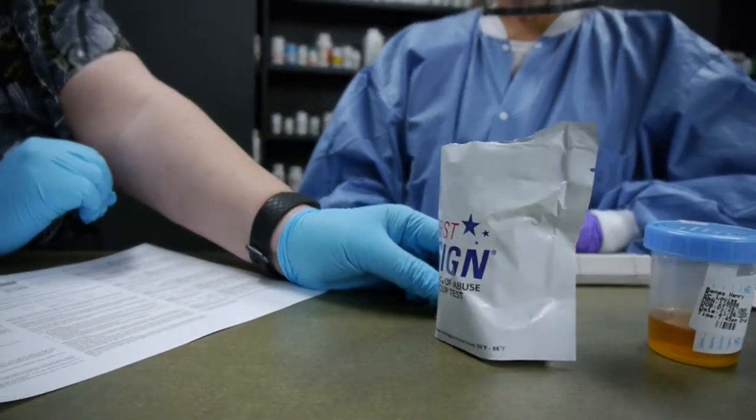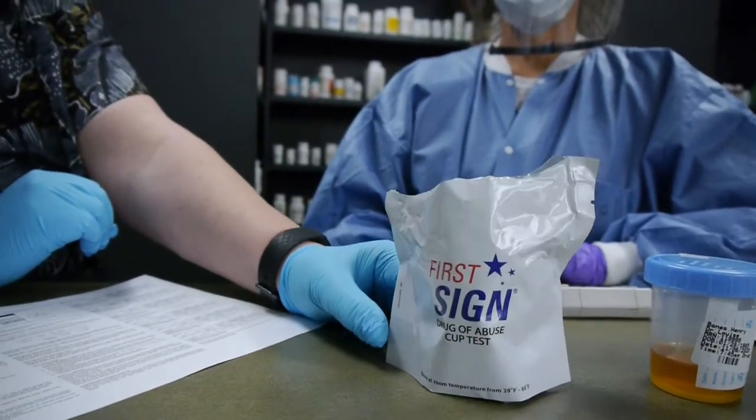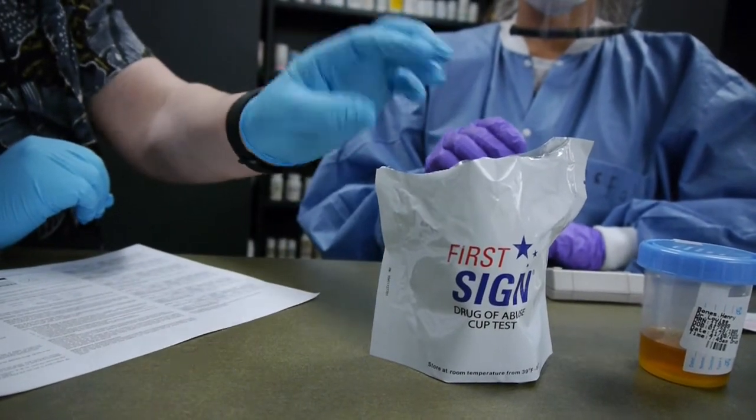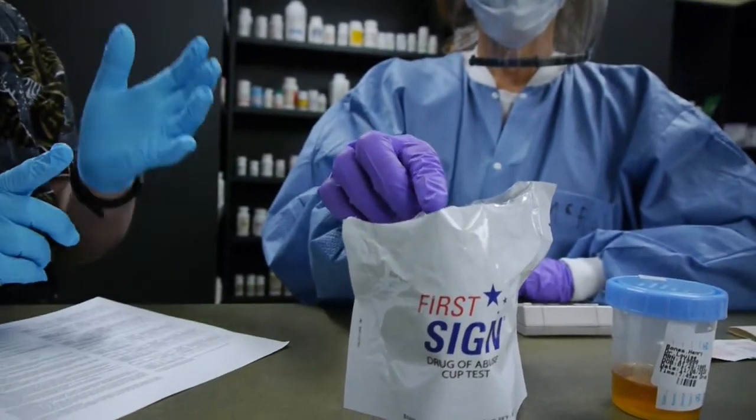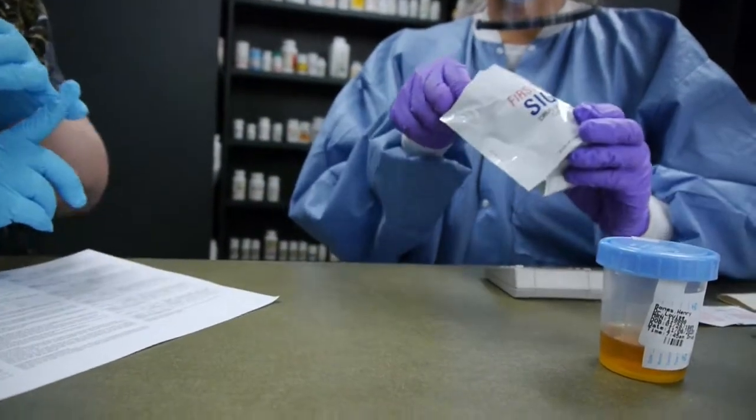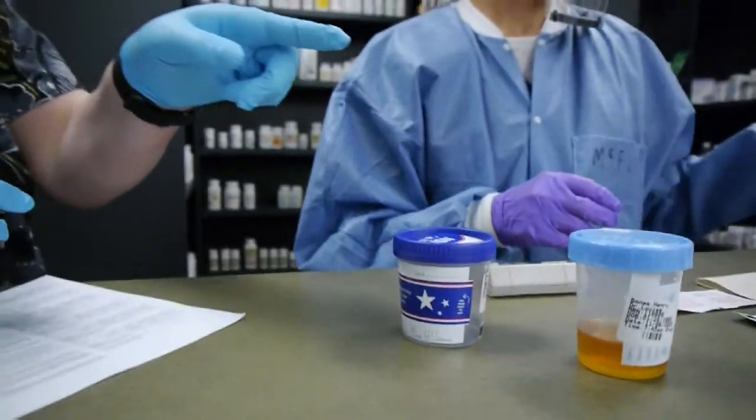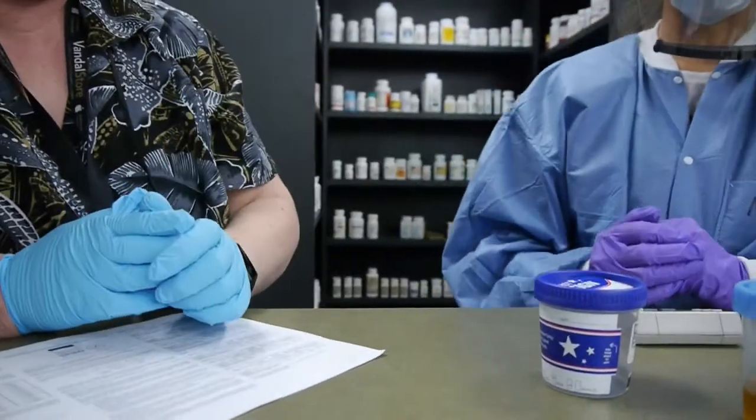We're going to demonstrate a first sign drug of abuse cup test. This is an opportunity for me to have you explore drugs, which is something that you need to know, and also do a test.